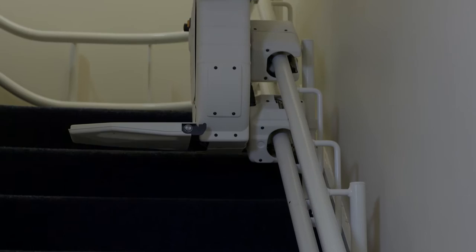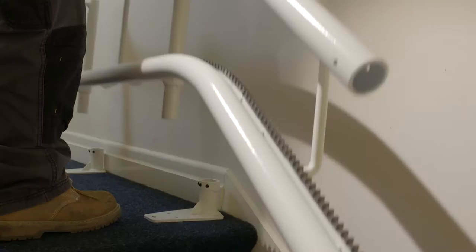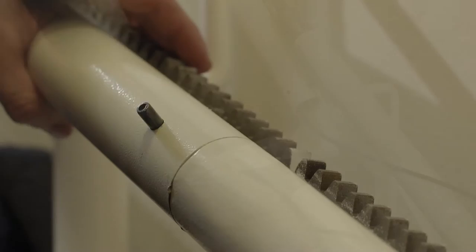Welcome to this Bespoke StairLifts installation manual. In this video, we will cover all the stages of the installation process, from pre-installation checks, track fitting, through to clean-up and demonstration.